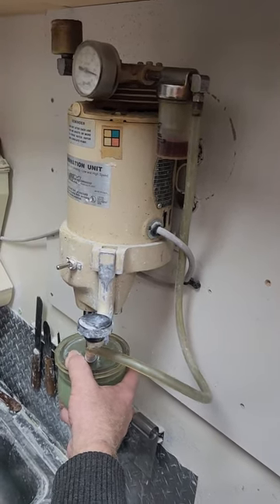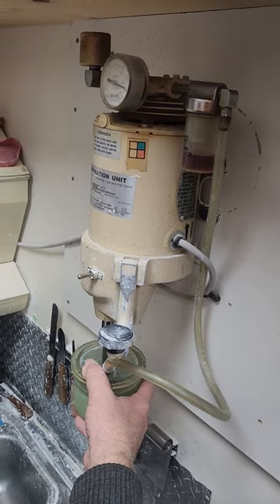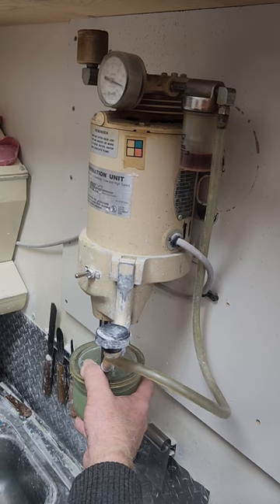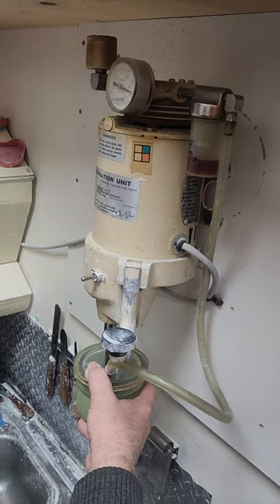Notice that we've got suction up here that's sucking the bubbles out of the stone while it's being mixed. We'll mix it for 10, 15, 20 seconds — for die stone that works out pretty well. The longer you mix it, the more it breaks up the little crystals that are beginning to form, and it'll make it set faster.